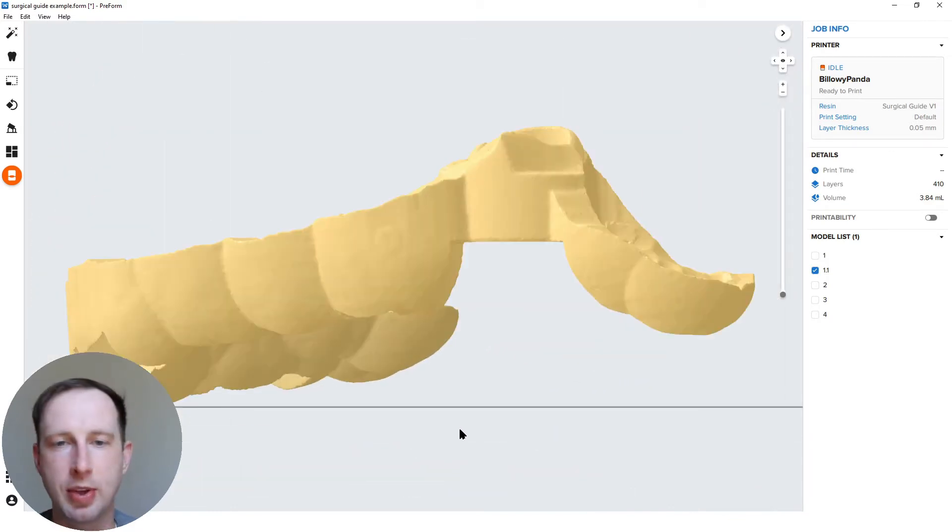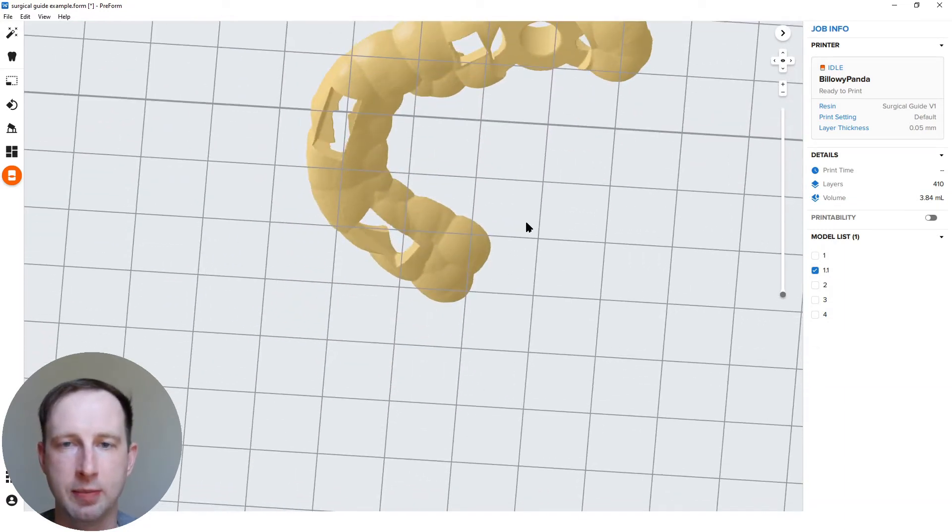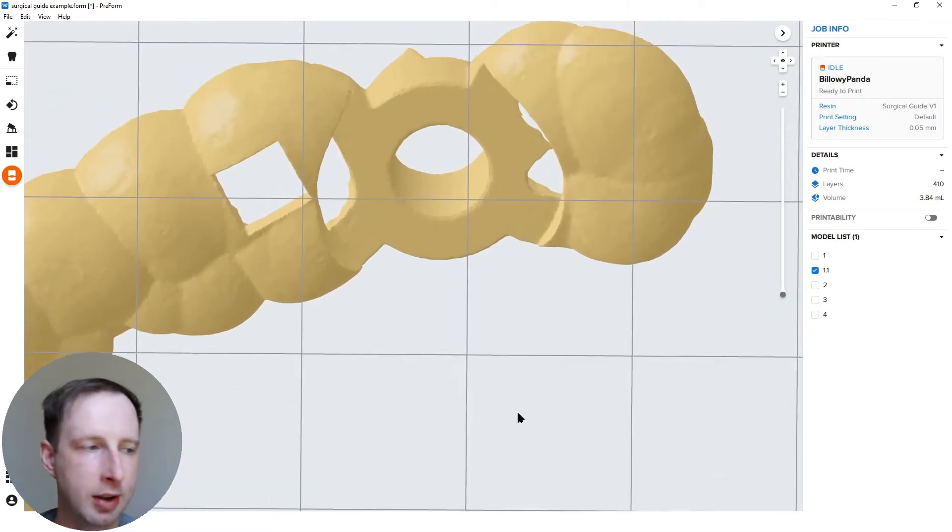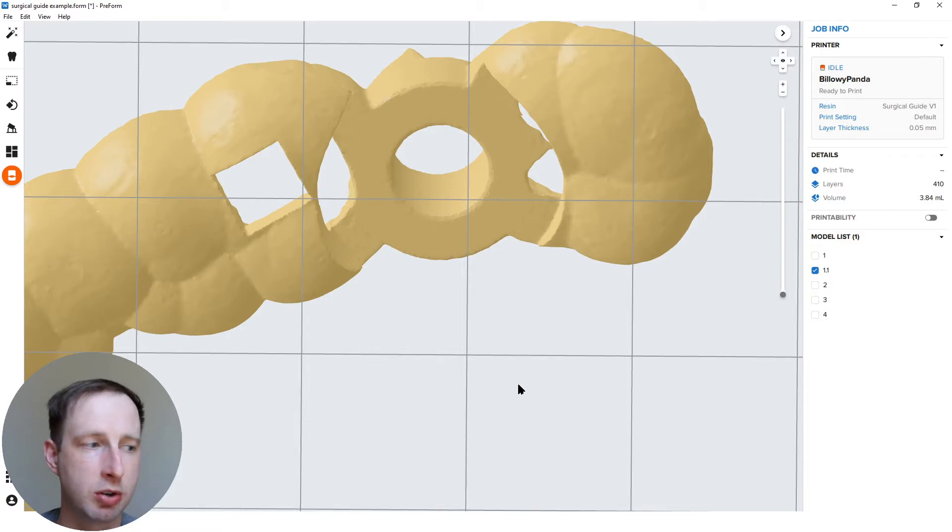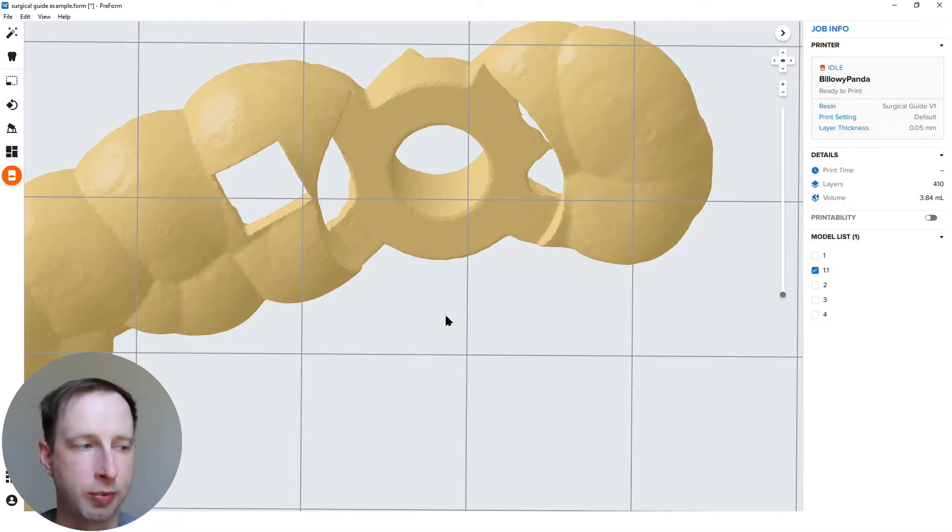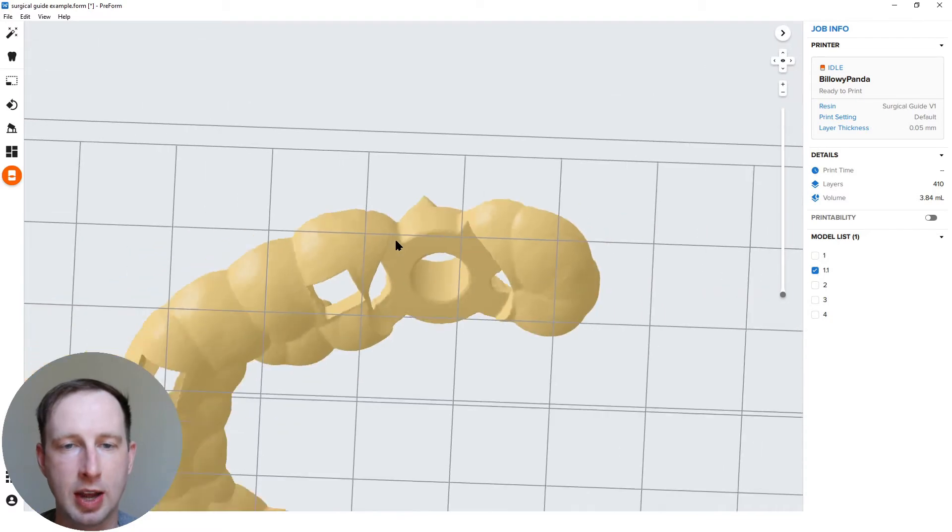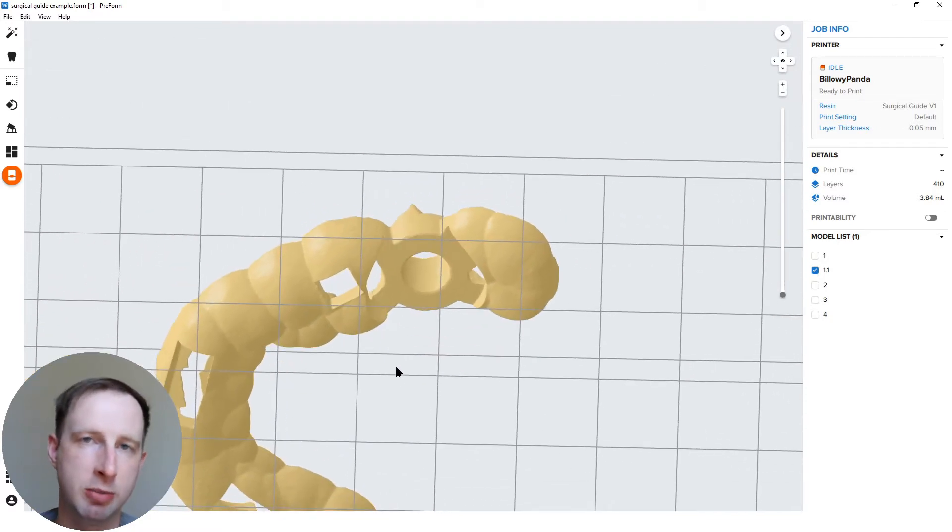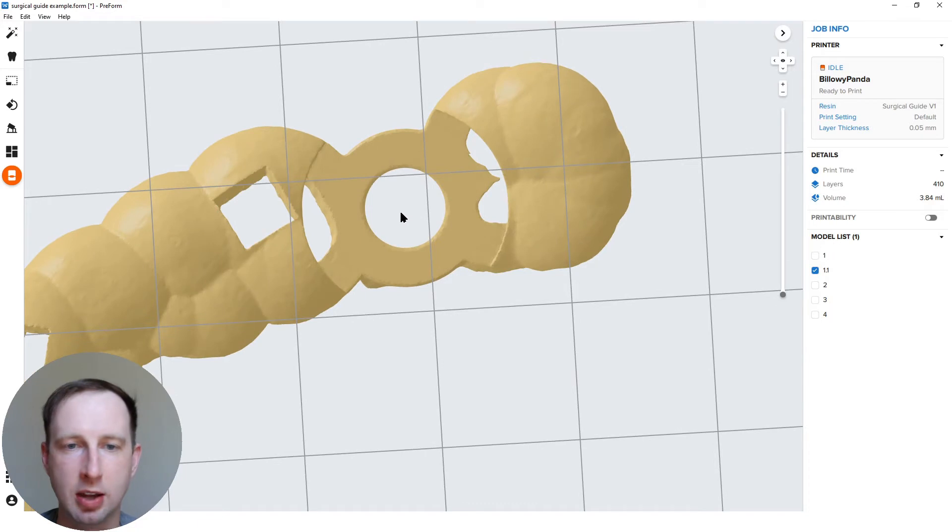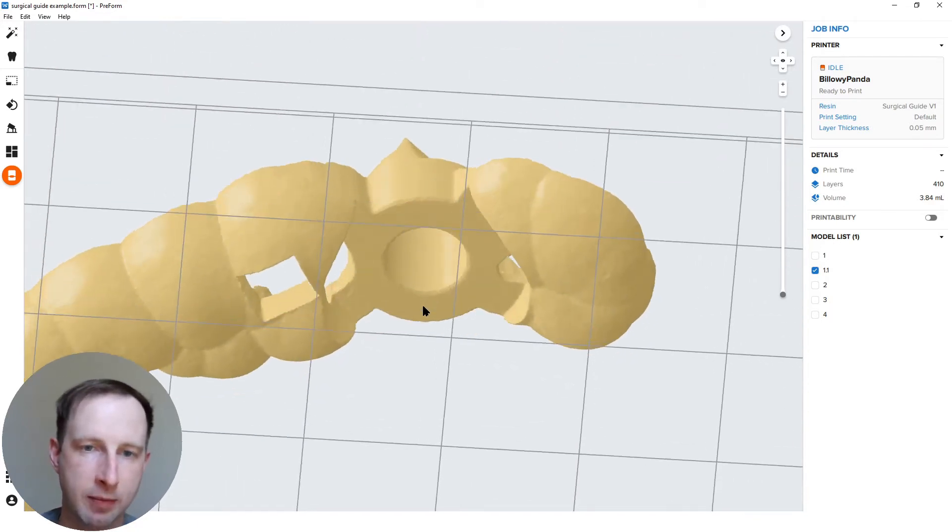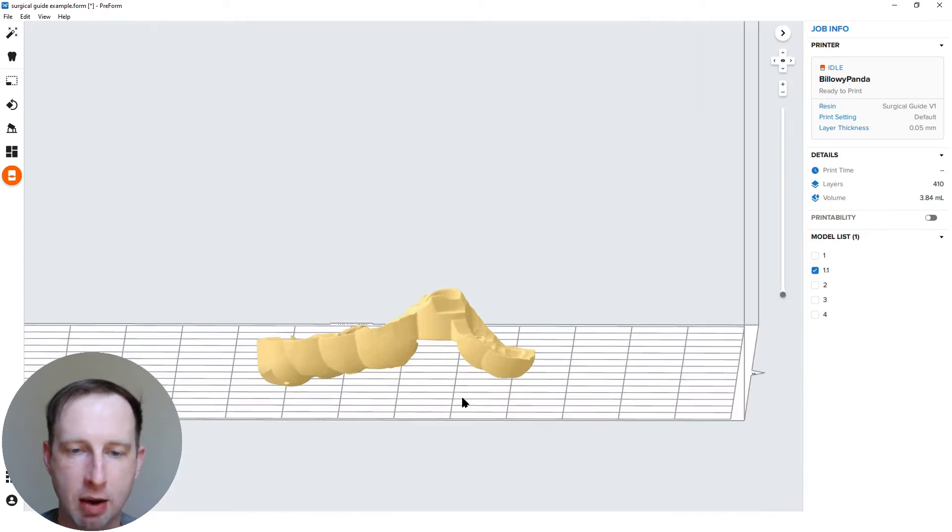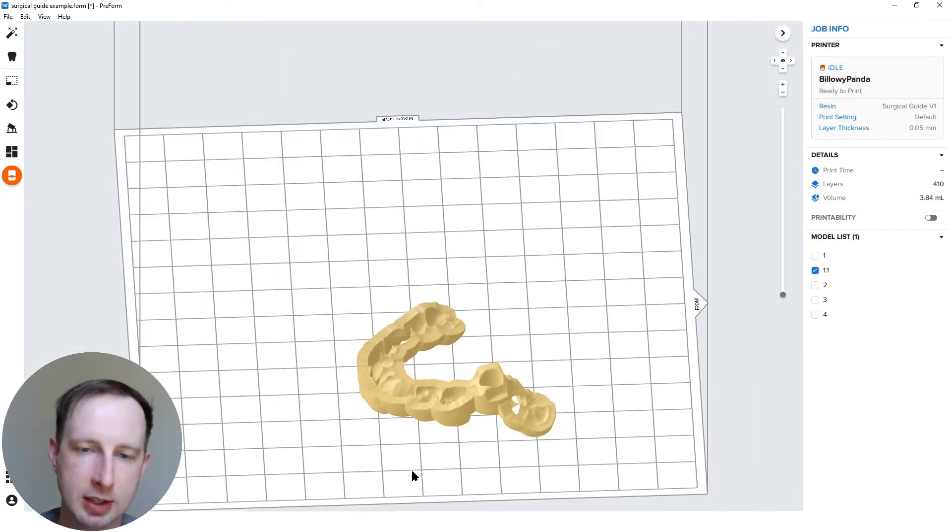The customer was talking about having the sleeves of the surgical guide being inconsistent in fitment. While following orientation best practices is really the best way to give consistency, and I'm going to show you exactly how to do that. But fundamentally, angulation of the hole for the sleeve or the implant guide hole should in theory be as perpendicular to the build platform as possible. To explain this another way, if you were to take the center point of this cylindrical hole in this guide, it should be absolutely straight up and down from the build platform as possible.